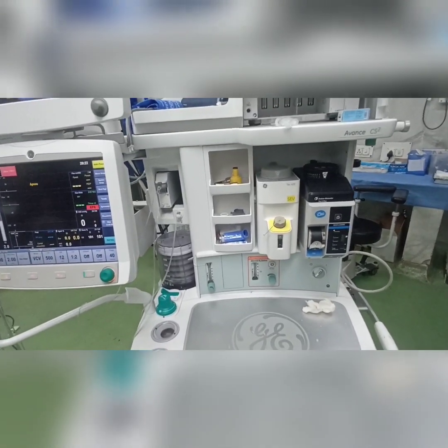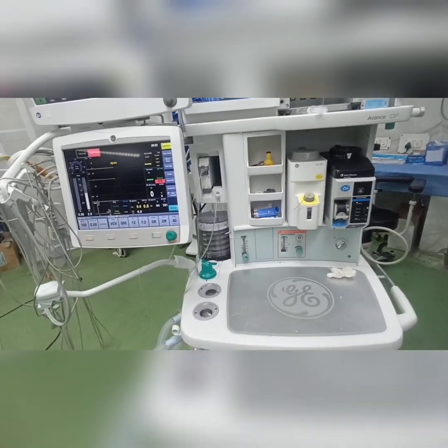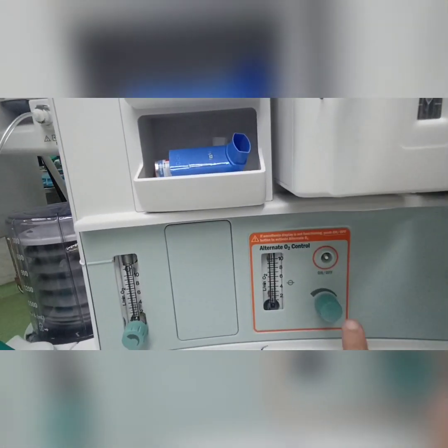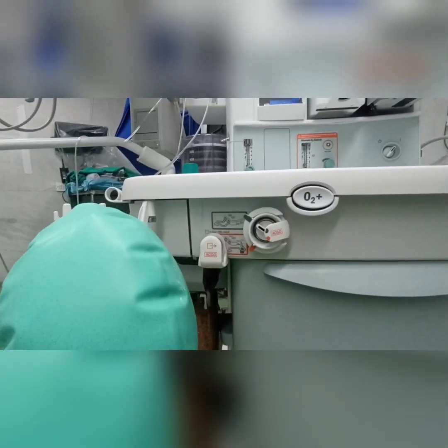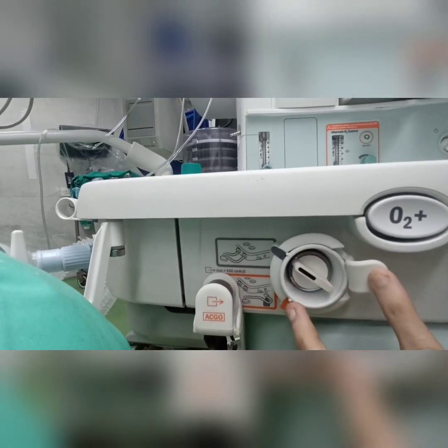The other difference is the auxiliary oxygen system. Now, how is the alternate or the auxiliary oxygen source used in this machine? I'll tell you that. This orange colored structure, this orange colored outlet, and this port which is orange, and then this is black.